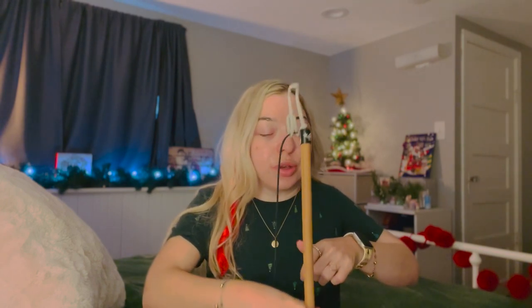So what you do is make the hole as wide as possible to get it over your head. For me, because I can't reach over my head very well, I use a dressing stick — I have these all over my apartment to help me with different things, getting dressed, putting things over my head. So I loop it through here. Someone with a little more range of motion could just fling it over their head, but my arms don't go that high, so I use something that can reach over my head.